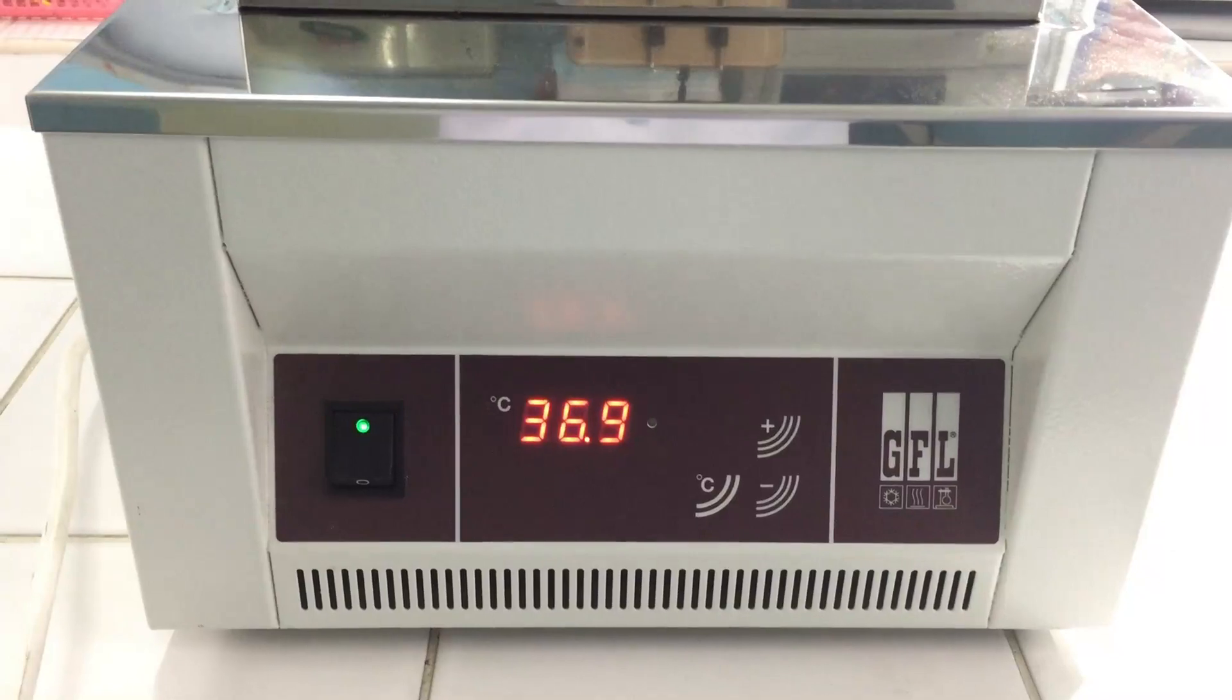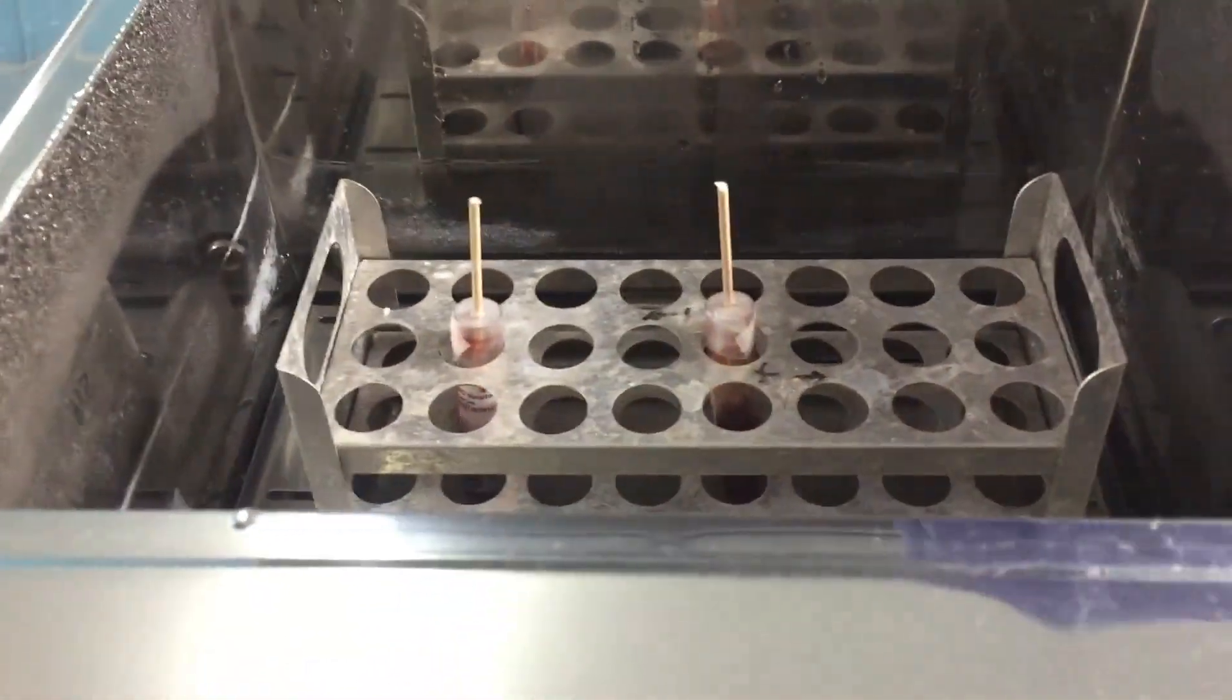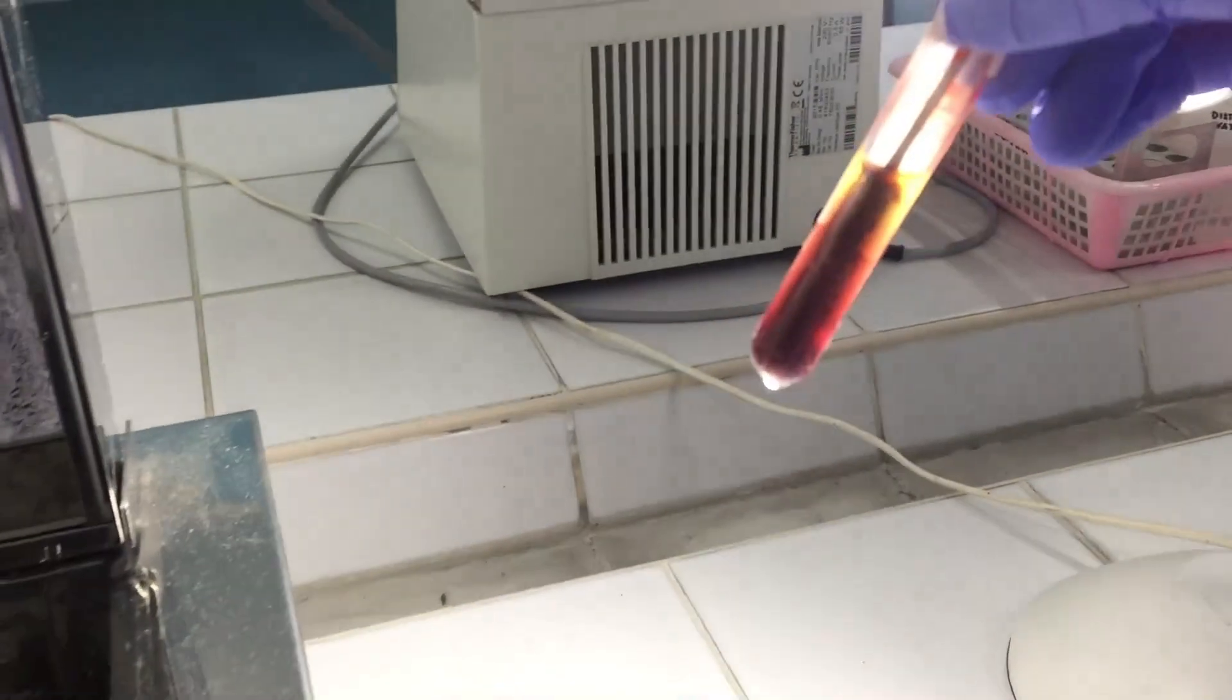After 1 hour, report the degree of clot retraction as normal or complete retractility, partial retractility, poor retractility, or very poor retractility.